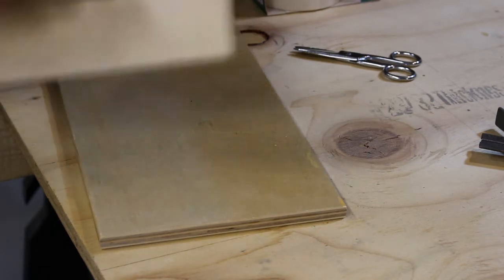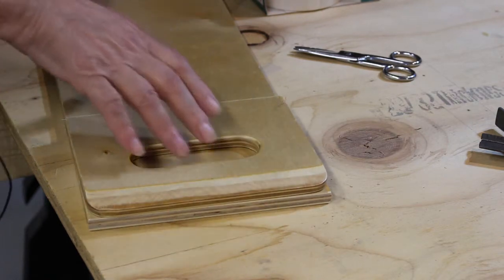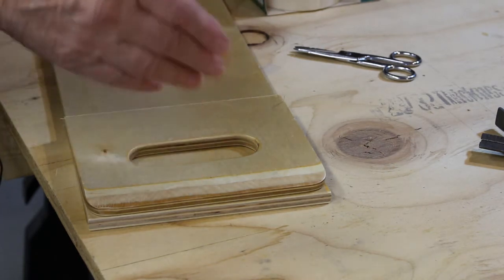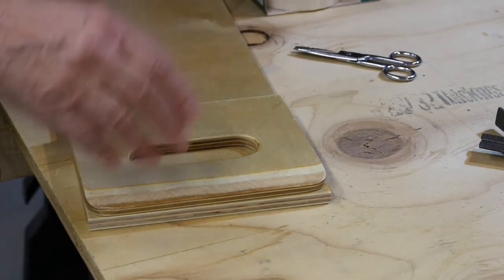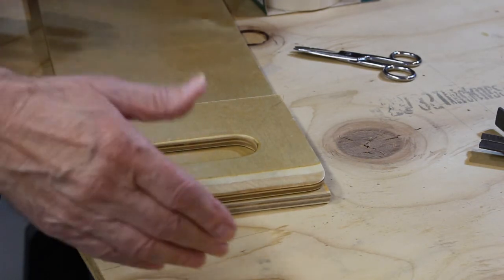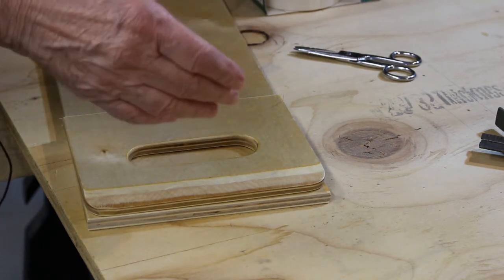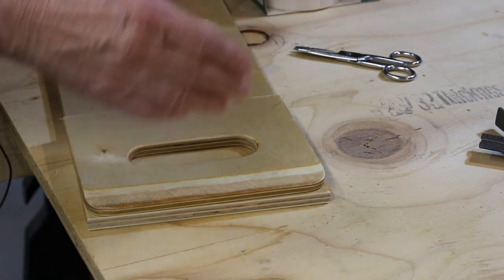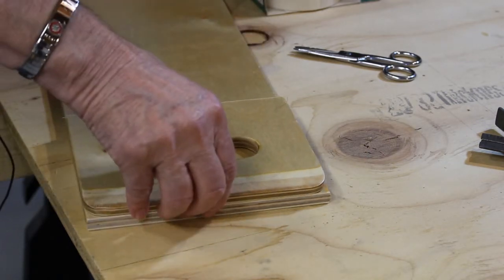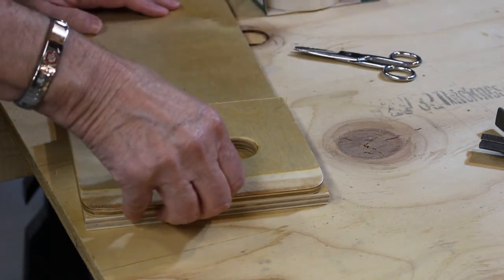I forgot to mention why I'm doing this. My daughter felt that with this long a board, trying to stretch it between her wheelchair and a chair or whatever, it bridged too big of a gap. She wanted to get her wheelchair a little closer to whatever chair she was getting into — the porta potty or whatever — so there'd be less of a span between the wheelchair and whatever she was going to transfer to. That's why I'm cutting it off.